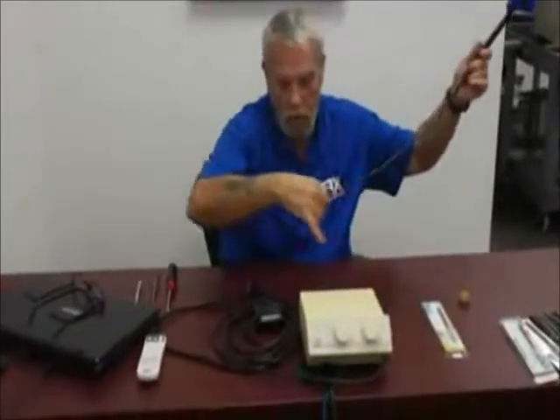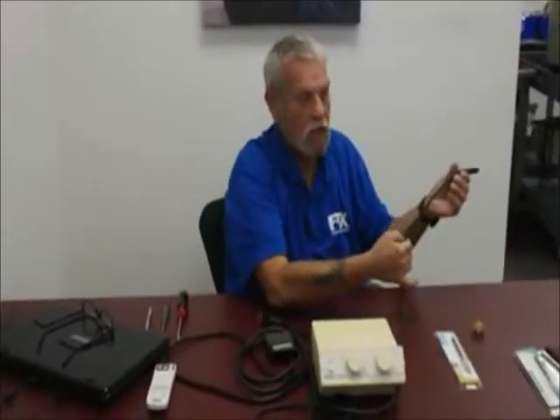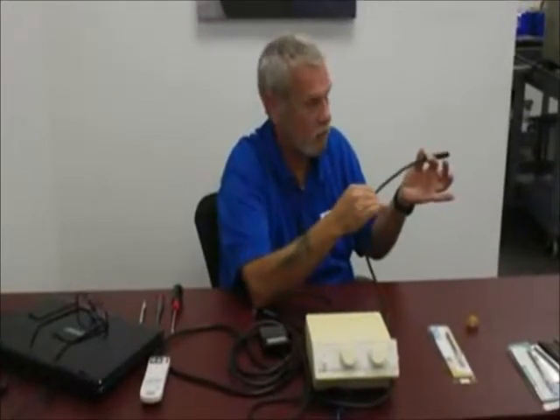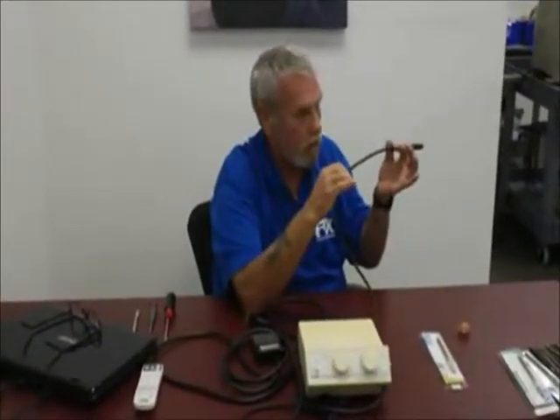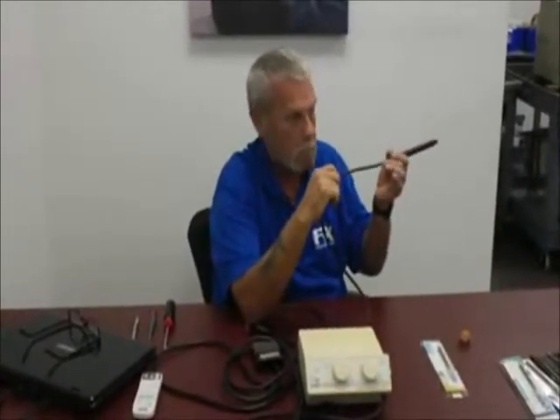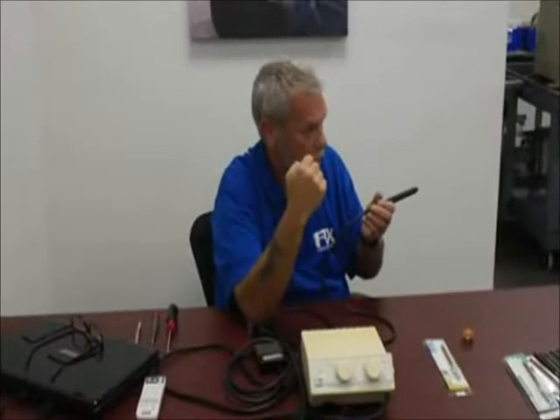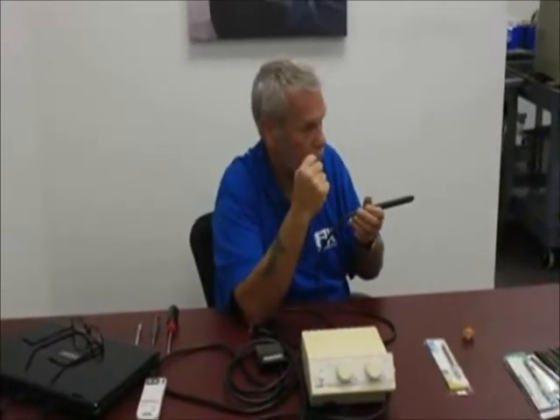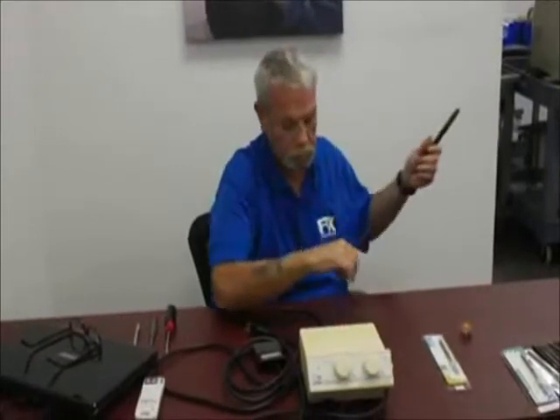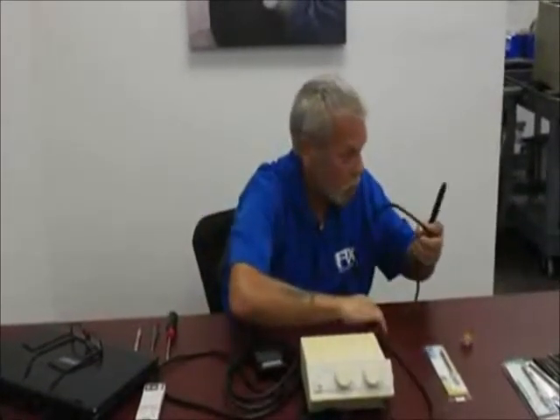Also, examine the cord. It may drape on the floor slightly. Examine the cord very carefully for cuts, dents, or nicks. The cord is very fragile — if it's stepped on or rolled over with a stool, kiss it goodbye. There's also a small 1/8-inch water line traveling through here that delivers water in conjunction with the wires. It's very important that the cord be maintained and protected.